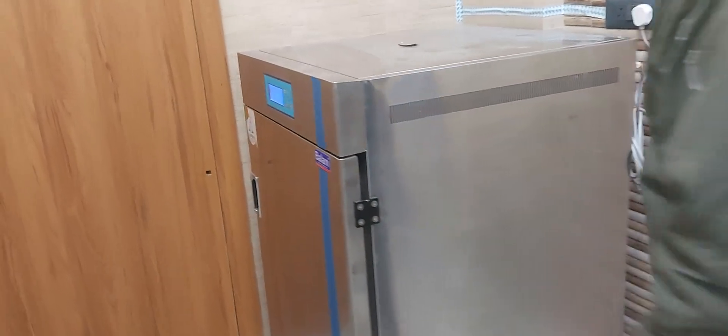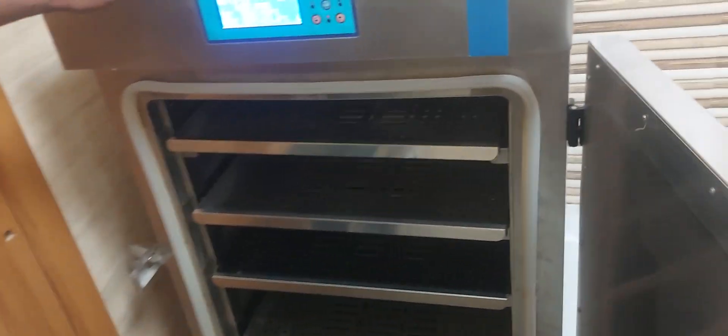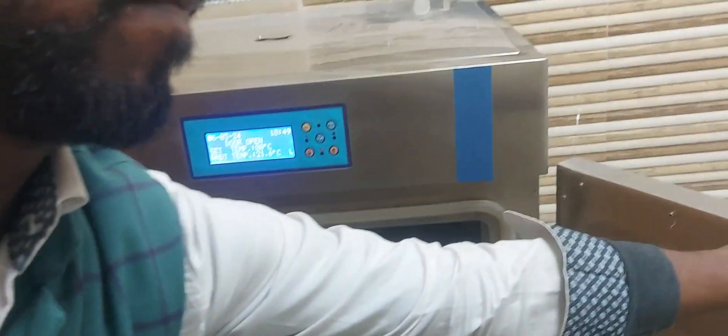This is a drying cabinet. The drying cabinet comes in different models — with a HEPA filter and a normal version. This particular drying cabinet provides 200-degree drying of different articles before putting them into the ETO.